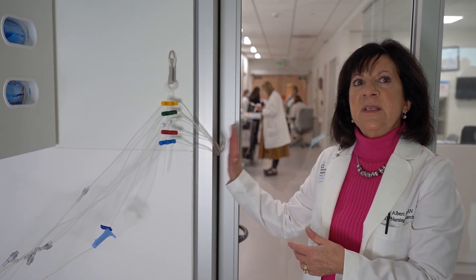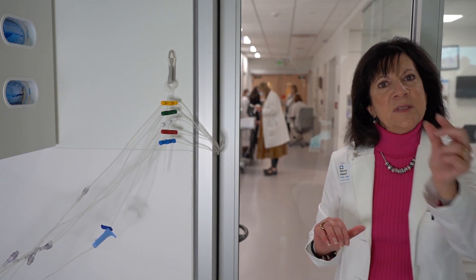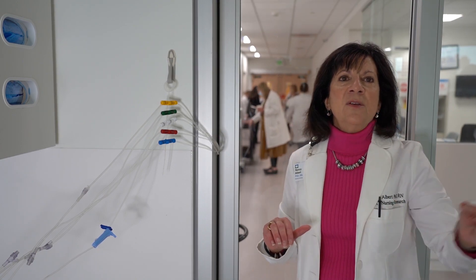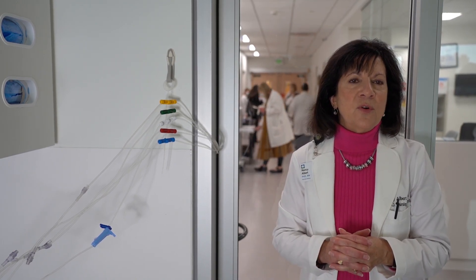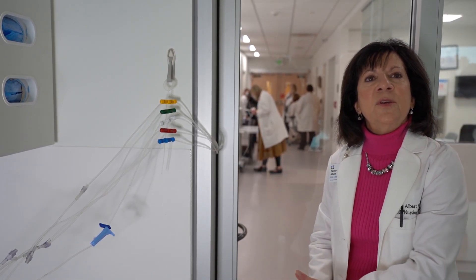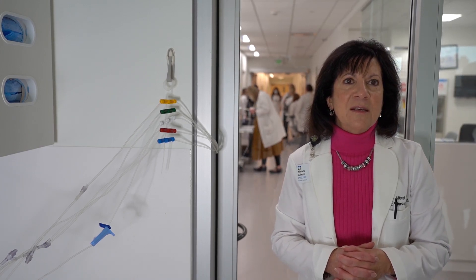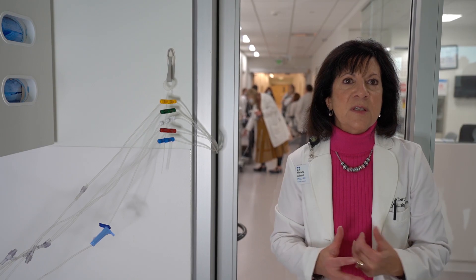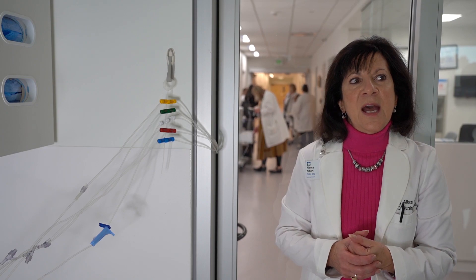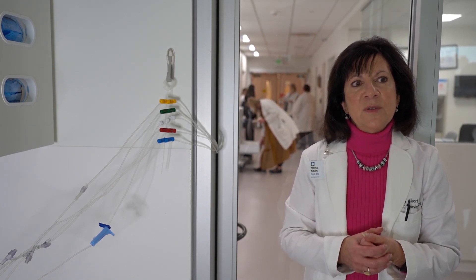If this was a really tight door, we would have to go on the other side where the door actually opens and leave a very slight one-quarter inch or one-eighth inch opening so that the tubing can go through the door. In some ICUs nurses are putting their tubing on the floor and having it go under the door — we all know that's not very sanitary and it's a risk for nurses as well due to fall hazards. That is one of the key benefits of using the HiLine versus the methodology many nurses have been using up till now.